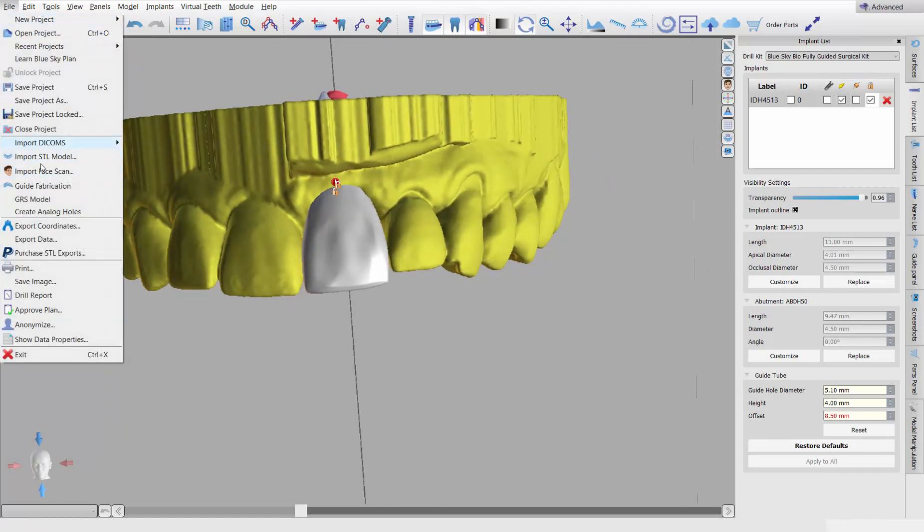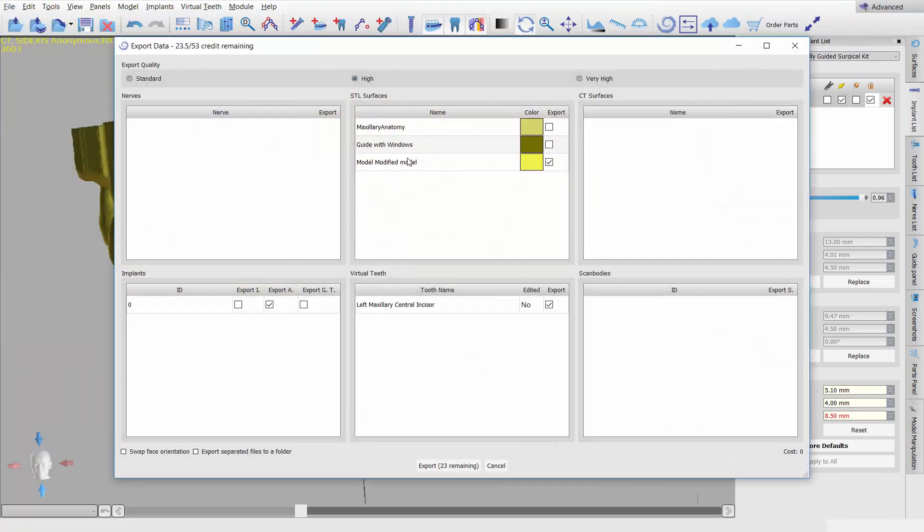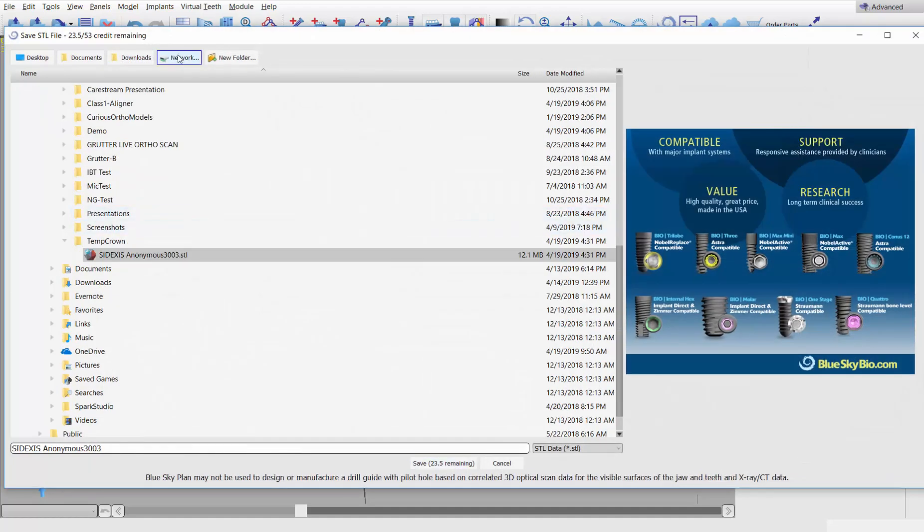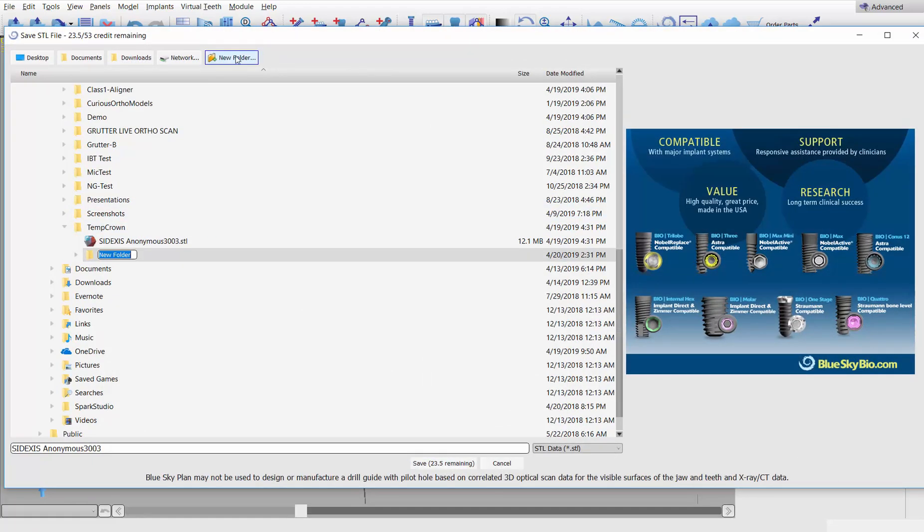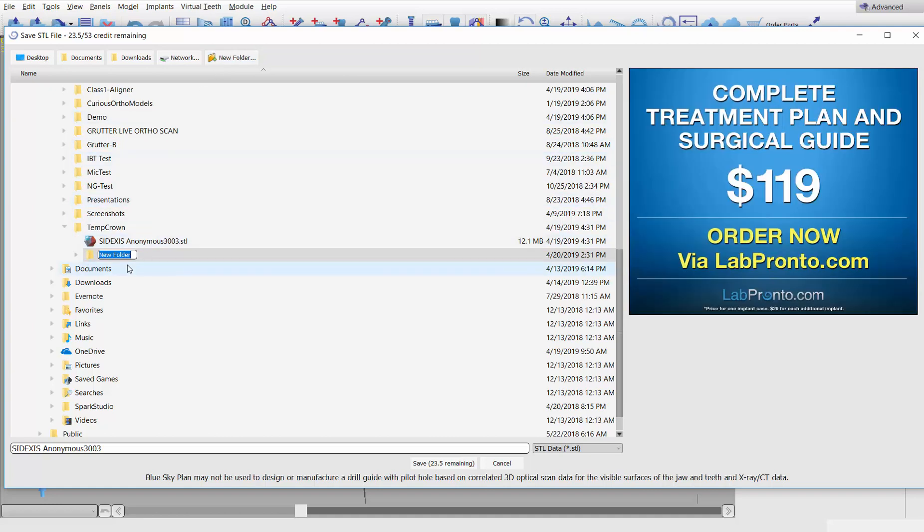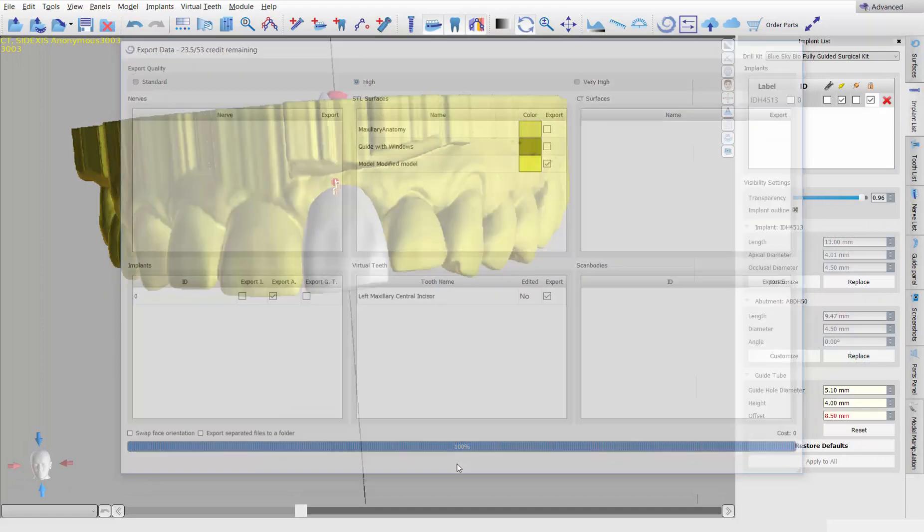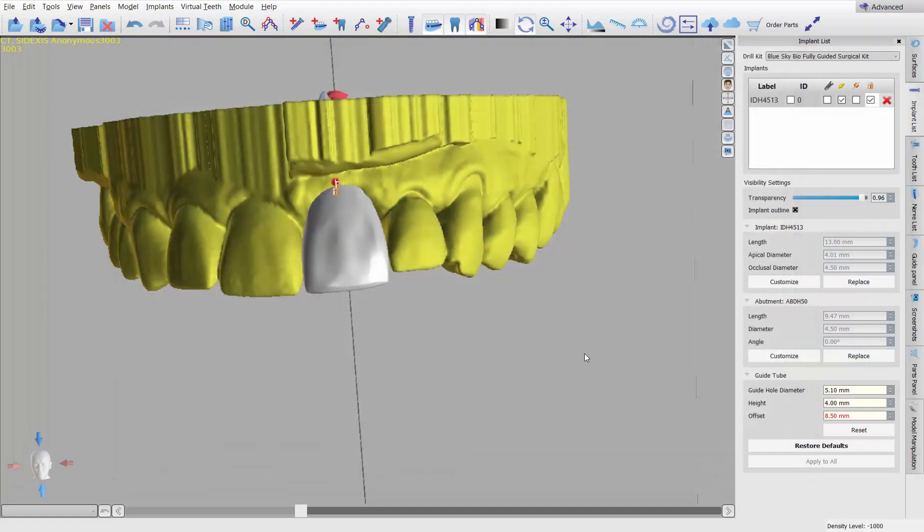Go to file, export data, and you can confirm modified model. You've got the abutment and you've got the central incisor. Now I don't recommend checking this box. You can, you certainly can. I just don't think it's necessary. I'll show you why. That would separate, that would export three different STLs. We're just going to export one STL and you'll see in just a moment why. So click on export, figure out where we're going to put this. And I'm going to say, I'm going to call this, a folder within a folder. We're going to call this immediate temp hyphen nine for tooth nine. Okay. And it's exported.